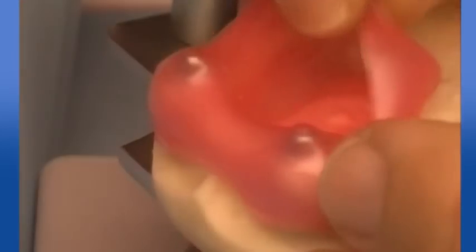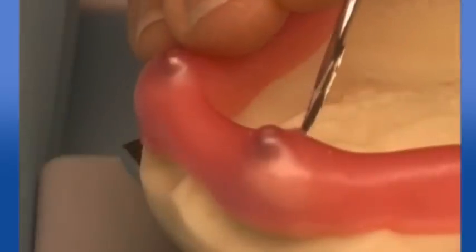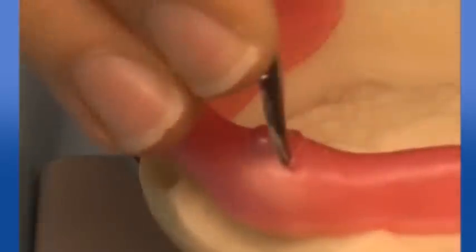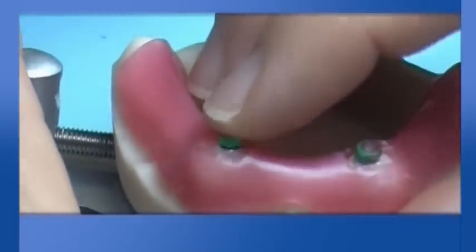The thin wax base needs the right thickness in order to allow curing of cast components inside the denture. It's important to have precision of the positioning rings in order to obtain the exact position of the metal cast boxes.